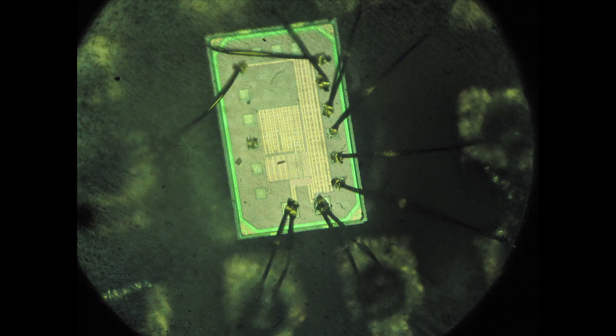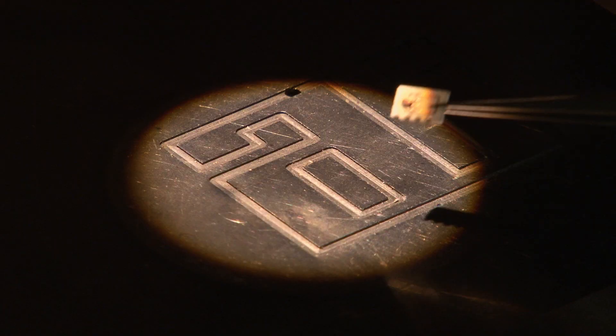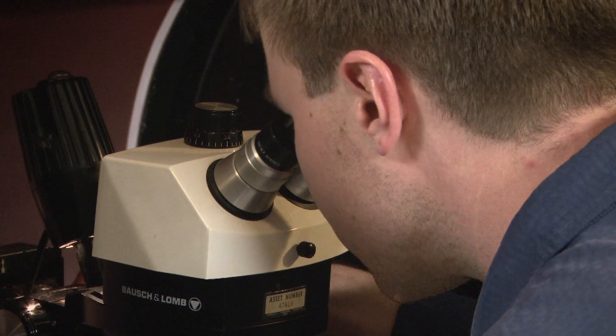Currently, we are brainstorming with the medical community and looking for potential applications. Doing things like putting a catheter in the heart and very precisely directing it to specific tissue is an application that can happen in the very short term.